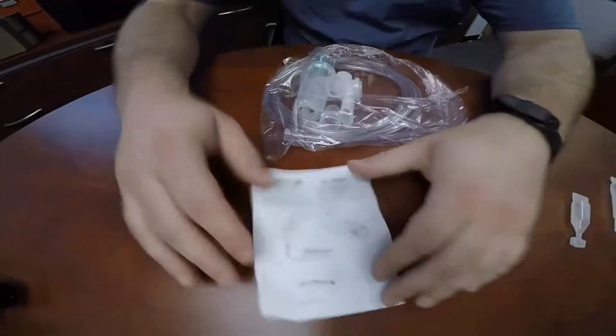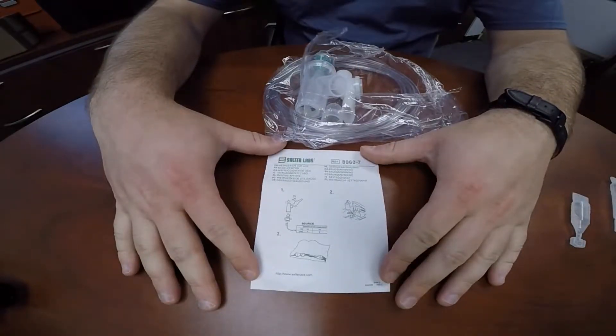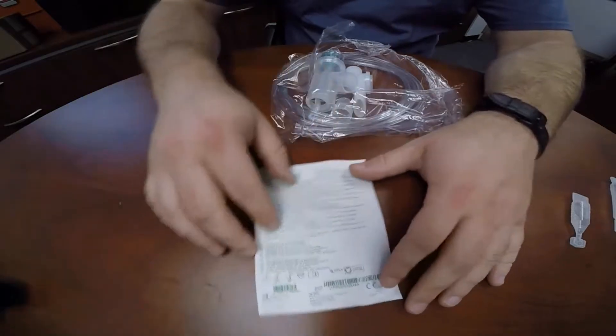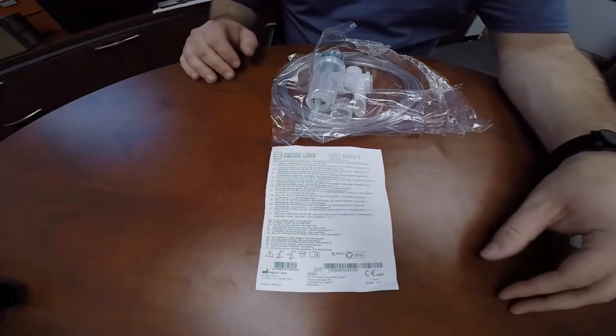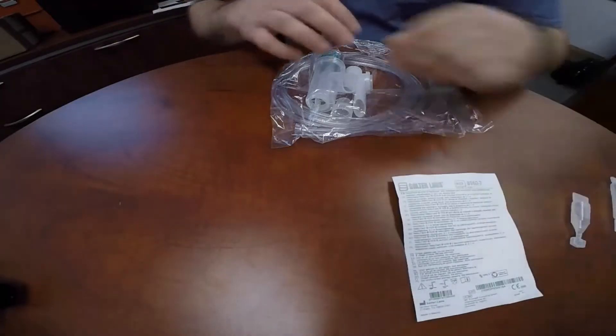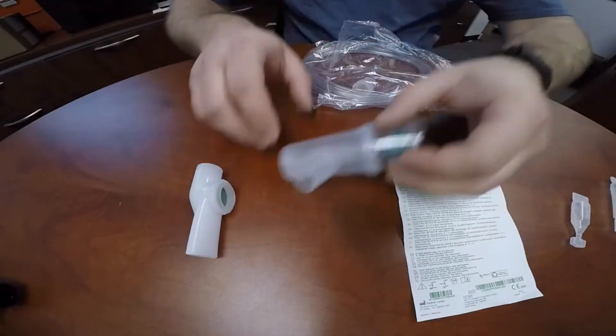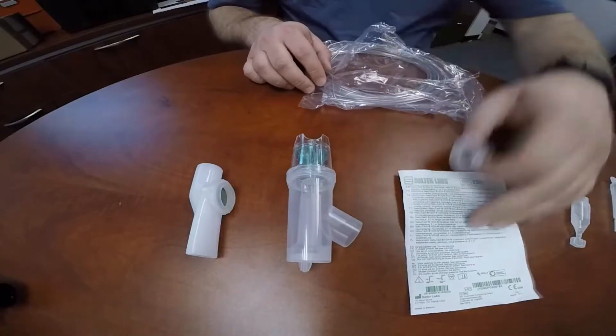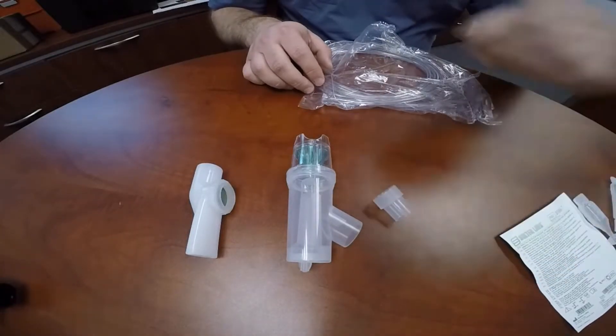You'll find the following components within the packaging: the device insert, and the equipment includes the mouthpiece, the nebulizing chamber, and the mask adapter.